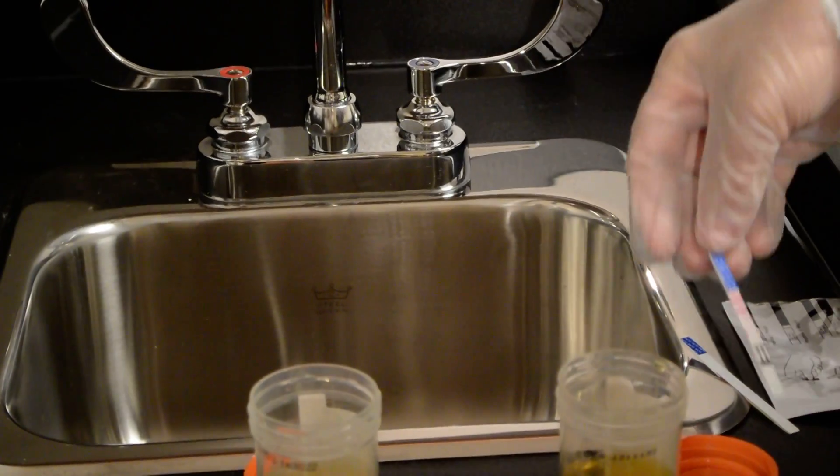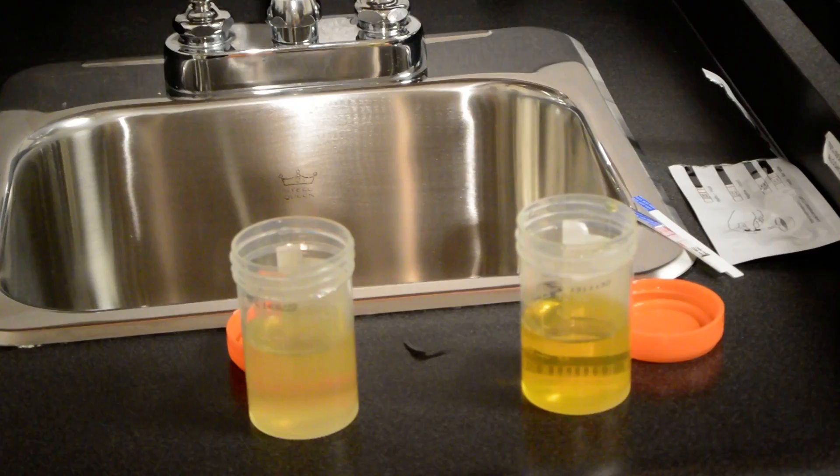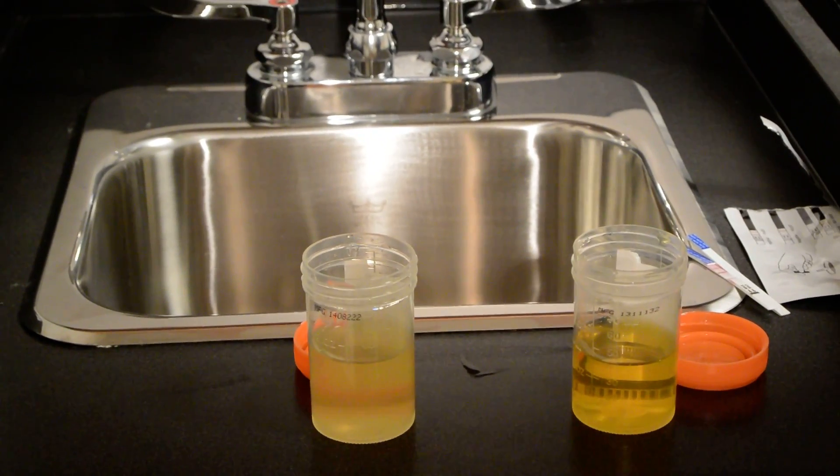Once you're done with the test make sure you discard the urine and that's how you do a pregnancy test.